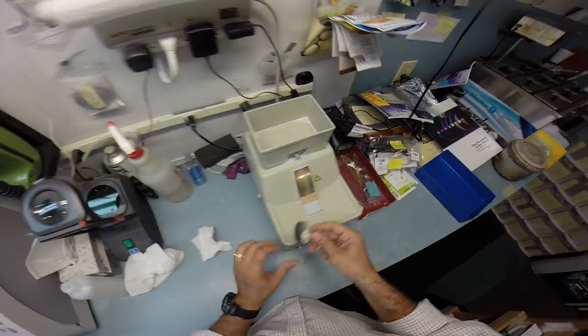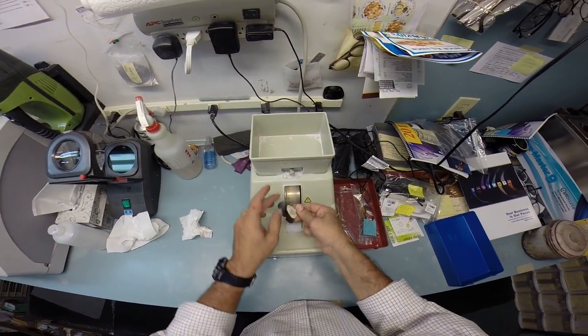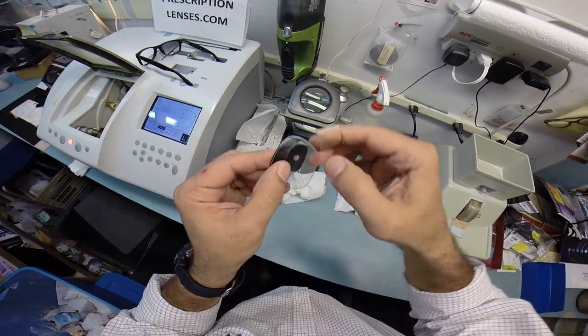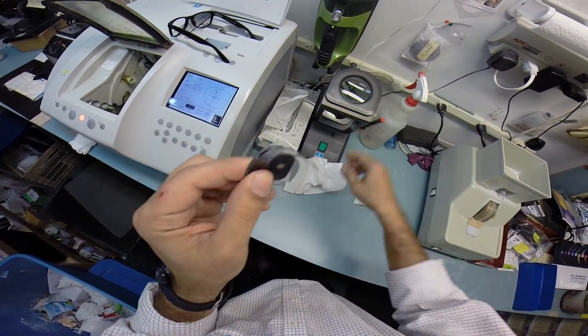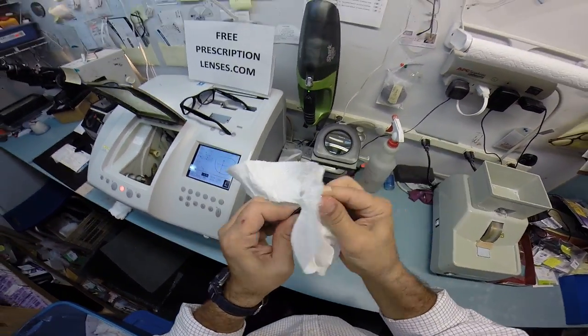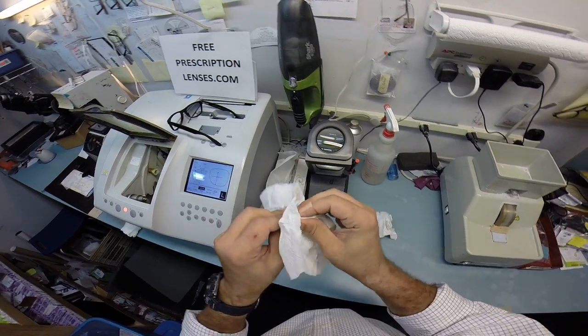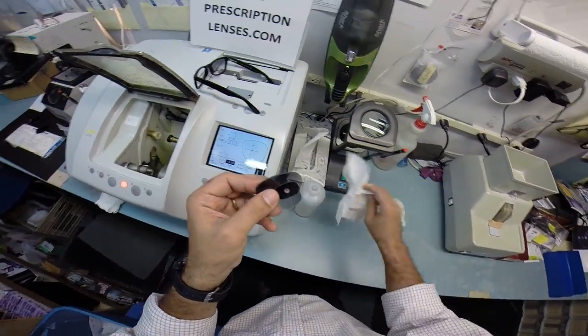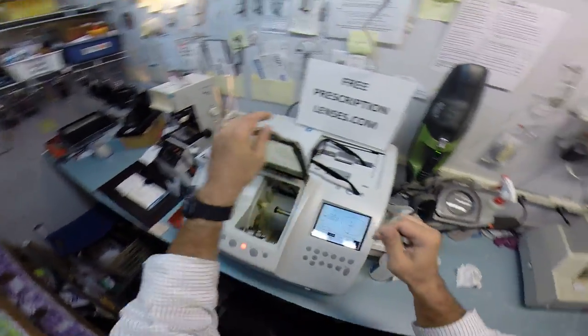Okay, so back to the handstone real quick. Back to the safety bevel. Now, actually, this white powdery substance you see along the edge of your lens, that is called schwarf. I lied. That's one more vocabulary lesson of the day. And if you're a Mel Brooks fan, this is where you say, may the schwarf be with you, but it's not going to be with you because I wiped it off your lens.